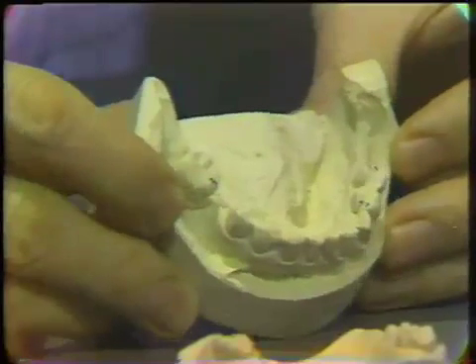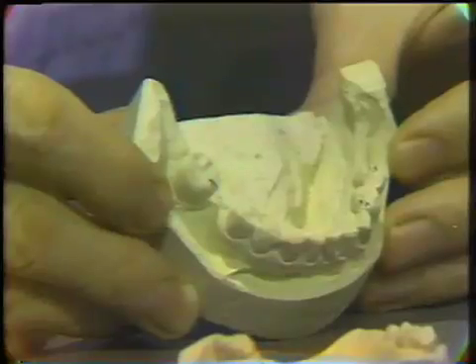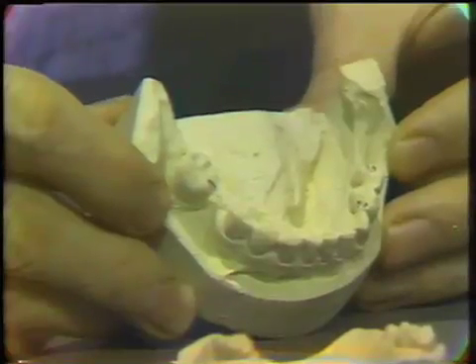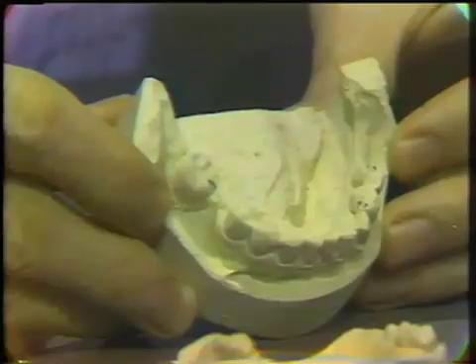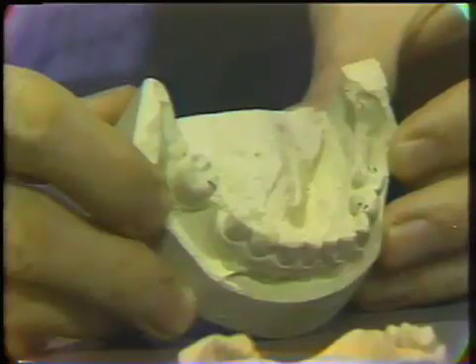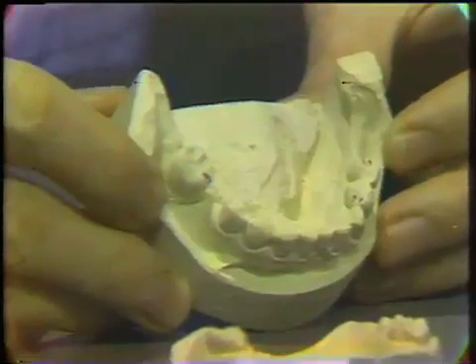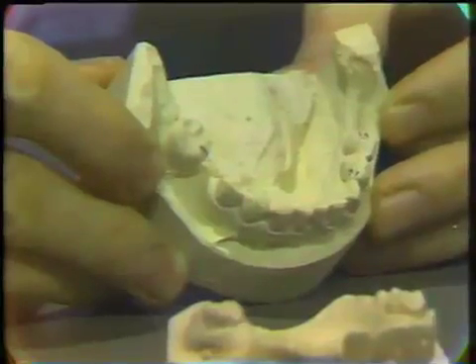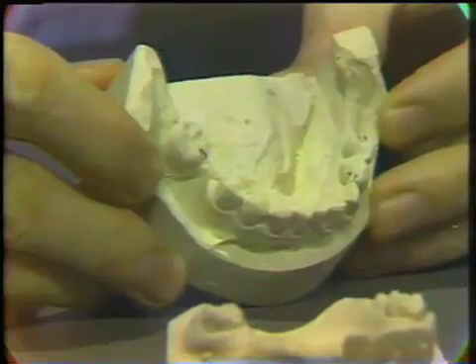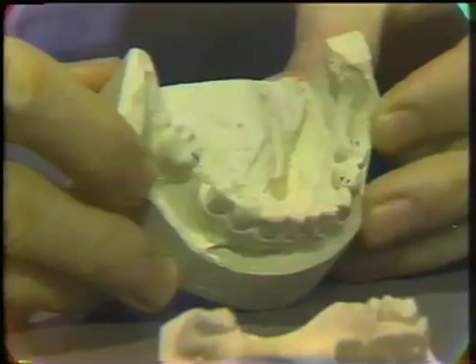The colors of these products may vary. This particular product happens to be pale yellow, while model plasters generally are white in color. This is not necessarily completely true, so you have to be careful in terms of reading labels on cartons in the dental laboratory.